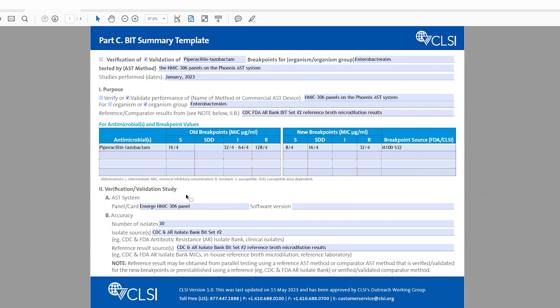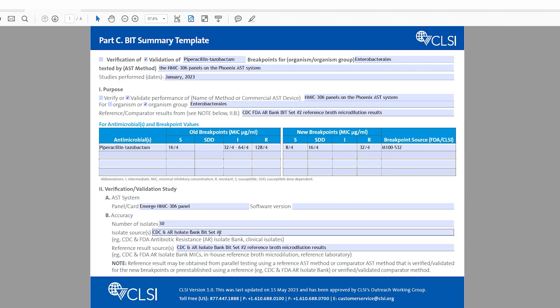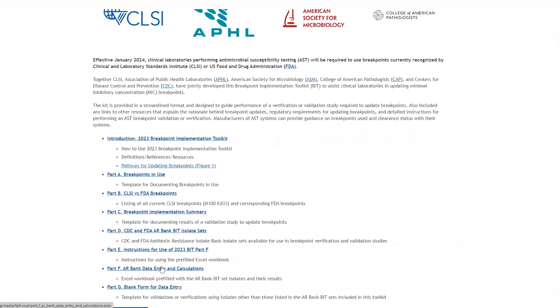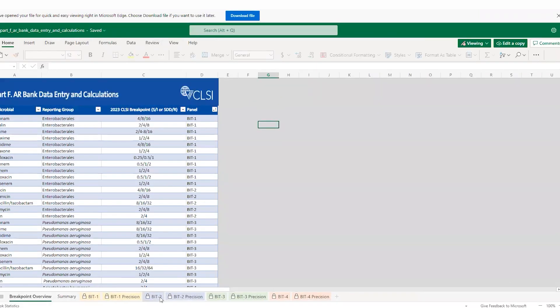Further down, it shows what is the verification/validation study under test — again highlighting the panel — and you'll also highlight the software version utilized by your system at the time of your validation. You'll outline the number of isolates; in this case, because it's a validation, we're using 30 isolates from the CDC ARBank isolate BIT2 set. Our reference result is the broth microdilution results for that panel of isolates. For reproducibility or precision, I chose five isolates that are also part of the BIT2 set. These isolates can be identified within the Excel spreadsheet under Part F for the ARBank data entry and calculations.